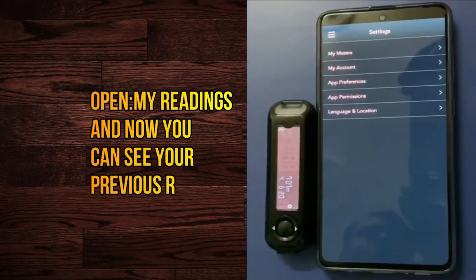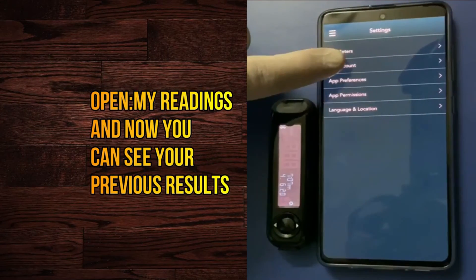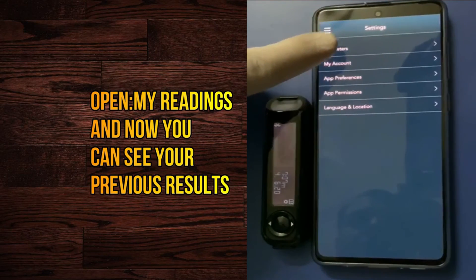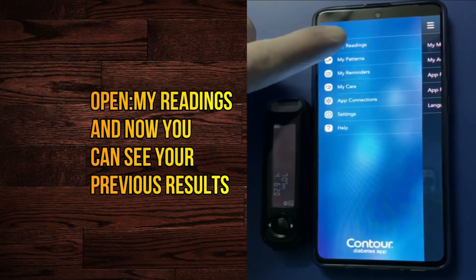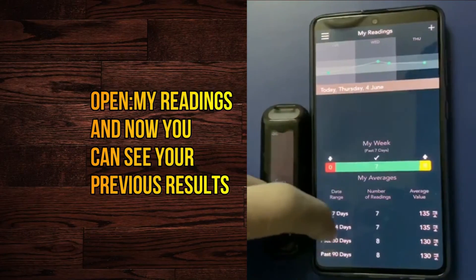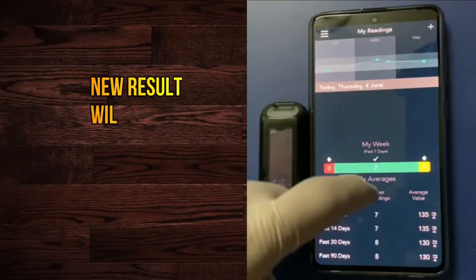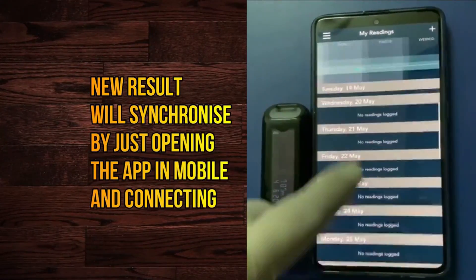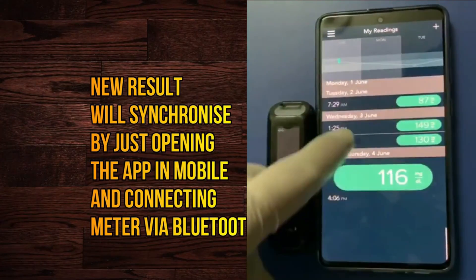All the previous results will be synchronized to the mobile app, and anytime you can discuss with your physician. If you want to transfer new data, just connect your mobile to the glucometer via Bluetooth and press the synchronization option in the mobile — all data will be transferred.